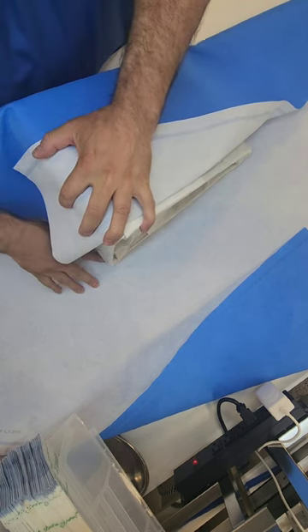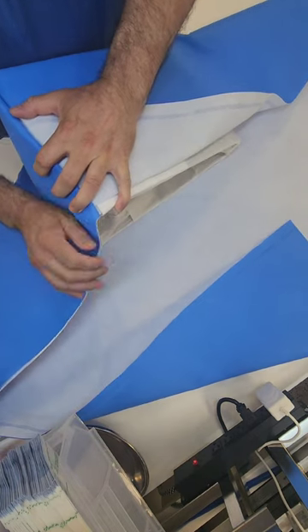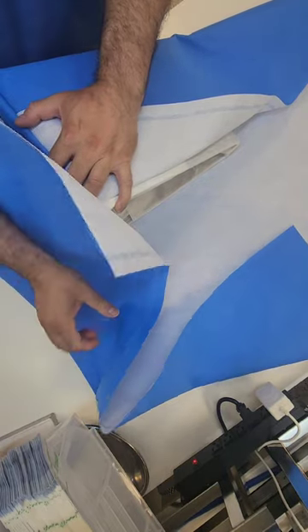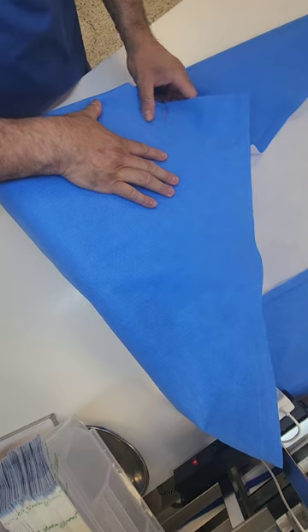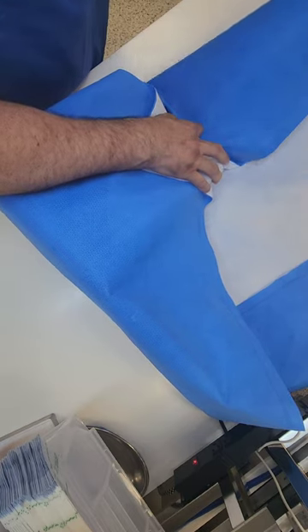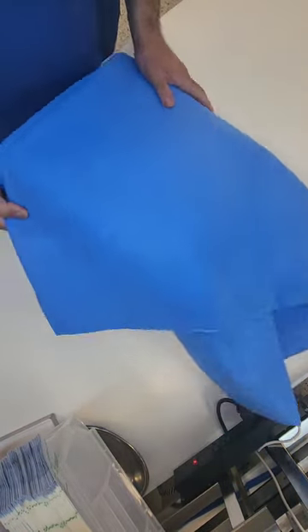But this is wrapping a triangle on a side angle, if you want to look, rather than the angle pointing away from you. So the first fold goes on top, and then you're going to continue wrapping like regular. You're going to do that complete wrap on the top here, get that side there. The thing here is that you want to get those sides parallel. When you get to the bottom of the triangle, you're going to go ahead, create your little fold, and bring that over. And this is easy peasy right now — this is a no-brainer.